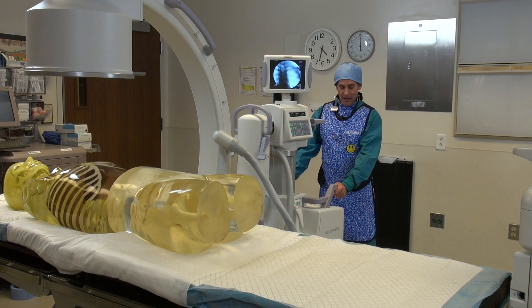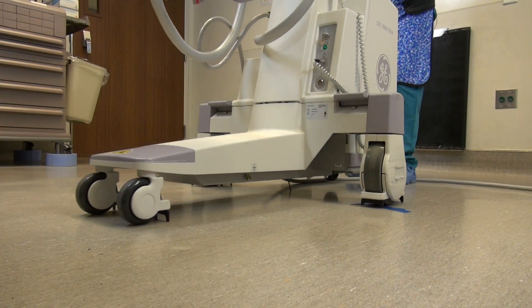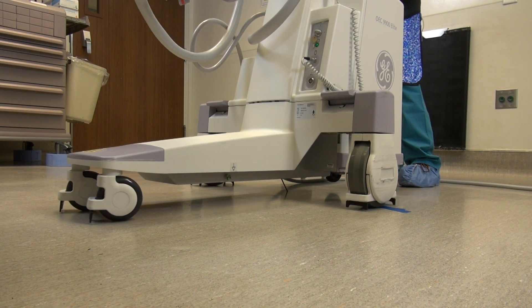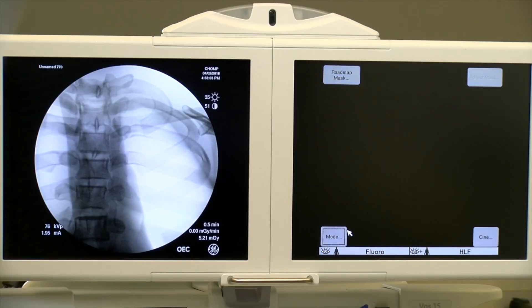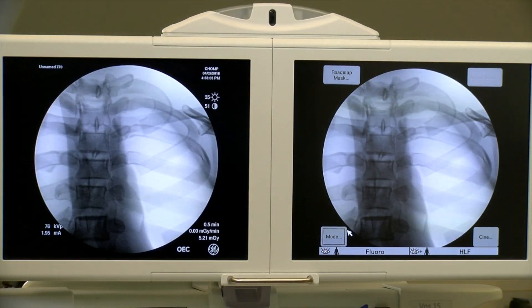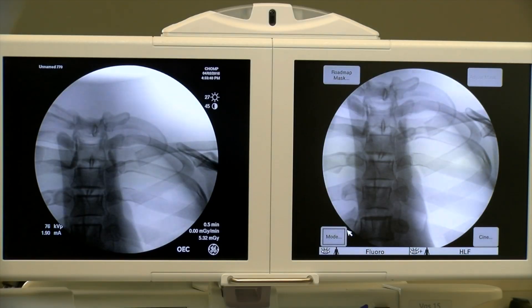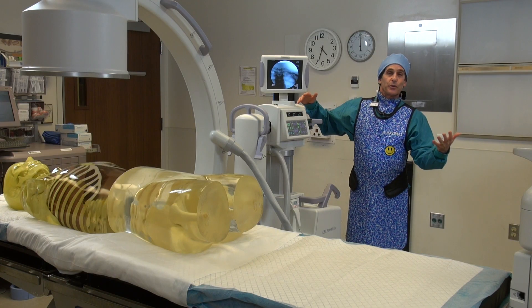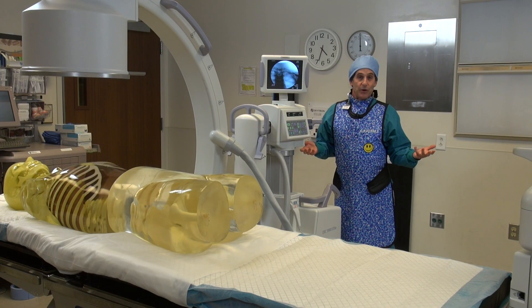So now I'm going to go ahead and just back out — unlock first, we're not going to go anywhere. Backing out. Got a foot. Now we'll come back in again. You can even see this whole thing just wobbling. And I go right back on the tape, lock it down, just make sure we're not moving. I'll move the image over to the other screen so we can see where we were, and now we'll go ahead and x-ray again. And you can see how off that is — we're off by a good three inches, which is obviously a nightmare when somebody wants you to center right over a body part. Now you're three inches off, wig-wagging and scrambling trying to get this thing back. And he's wondering why didn't you just come back to where you started? Well, you can't because the equipment won't allow it.